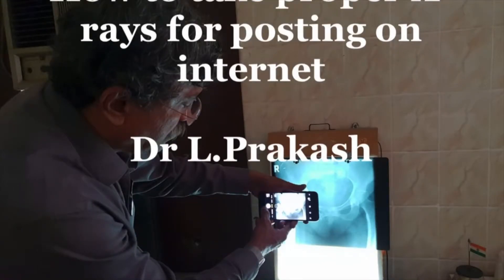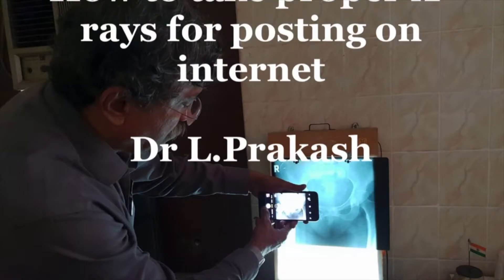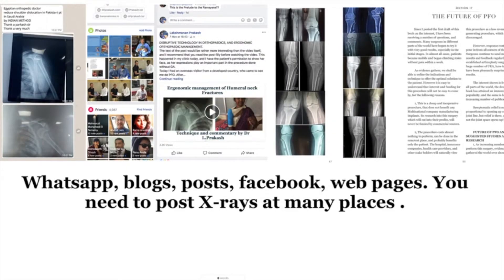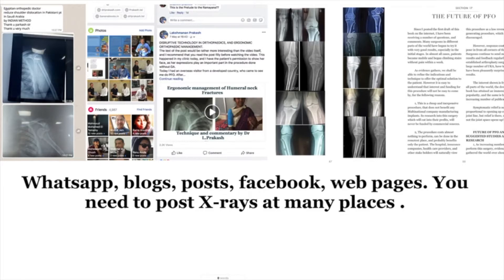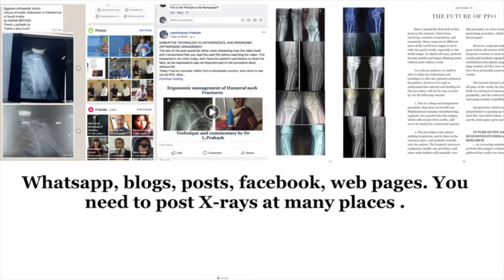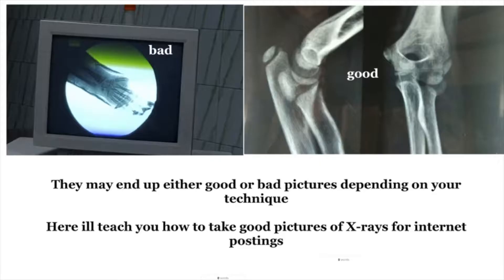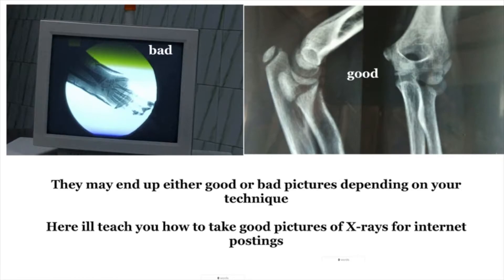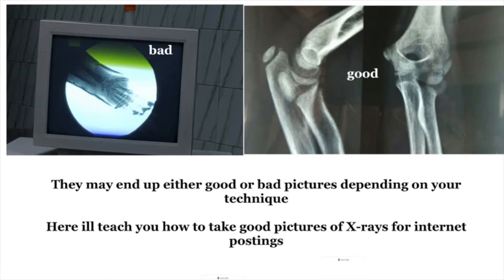This short video will teach you how to take proper photographs of X-rays for posting on the internet, such as blogs or WhatsApp posts. These days we have a lot of academic groups and forums on WhatsApp, blogs, posts, Facebook web pages, and X-rays are being posted. Many times patients send X-rays to doctors. It is natural that we need to photograph X-rays on many occasions, and these X-rays might end up as bad or good pictures depending on your technique. Here I will teach you how to take good pictures of X-rays for internet postings.